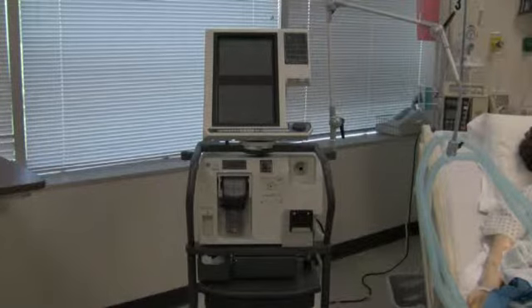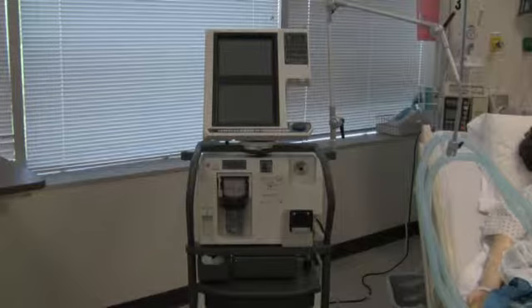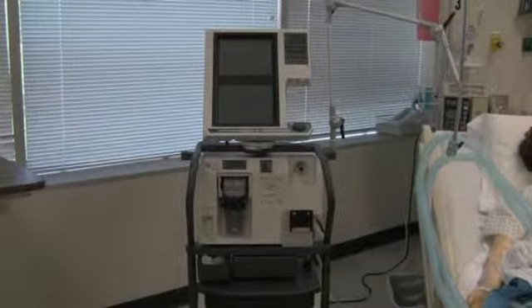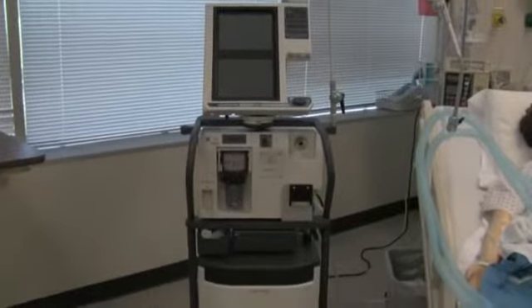Welcome back again. Today we're going to be covering the Puritan Bennett 840. This is much like the 7200, just newly updated, a much newer machine than the 7200. You can see from here that down below it still has a built-in compressor that sits down in the bottom.